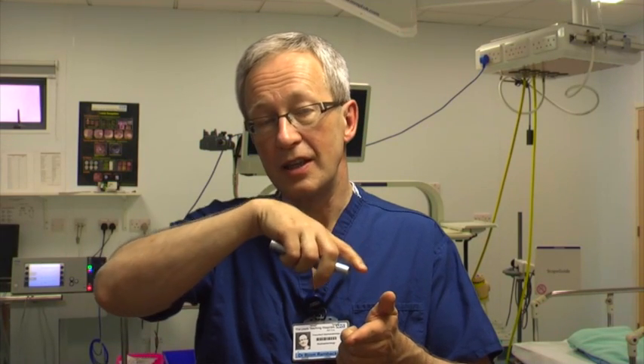Diathermy is a type of witchcraft — hocus-pocus electricity. The yellow pedal is used to cut and the blue for coagulation. But you really want a blend rather than pure cut, because you're cutting through living tissue and want a little bit of sealing of vessels as you go through. The only time I can think of using pure cut would be for the circumferential cut around an ESD site, or perhaps sphincterotomy, but even then you want a little bit of coag because there may be vessels.